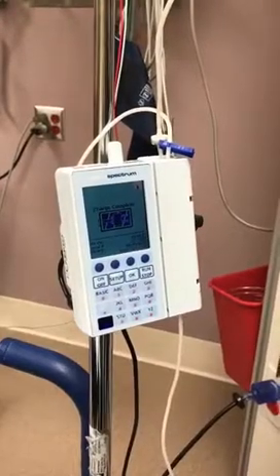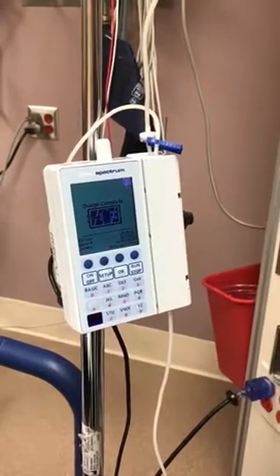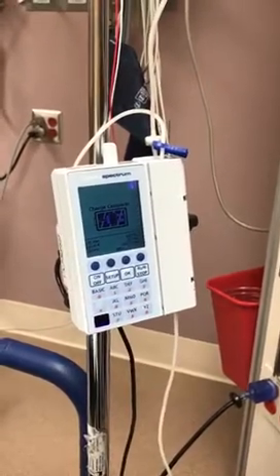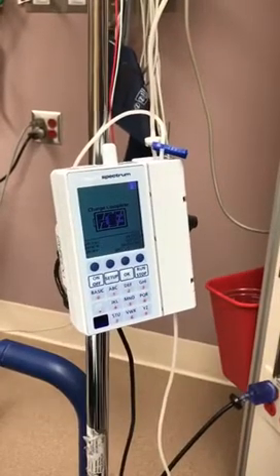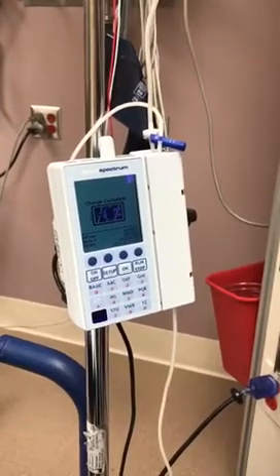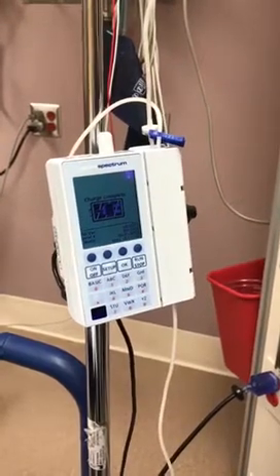The purpose of this recording is to educate on how to provide bolus doses of a medication from the smart pump. Patients oftentimes receive a sedative, also known as an induction agent, as well as a paralytic prior to intubation. However, this sedative usually has a short duration of action and does not last long enough following intubation.